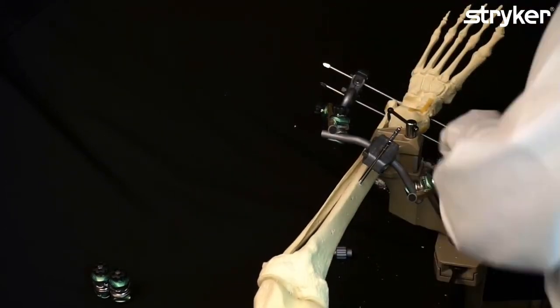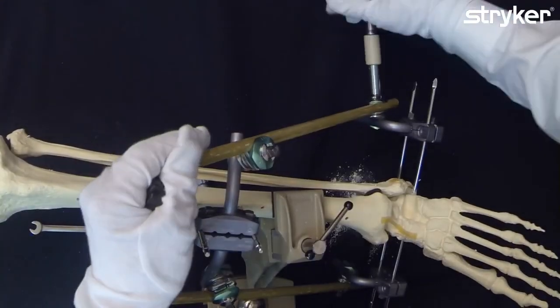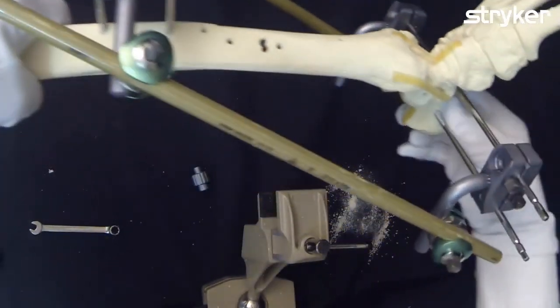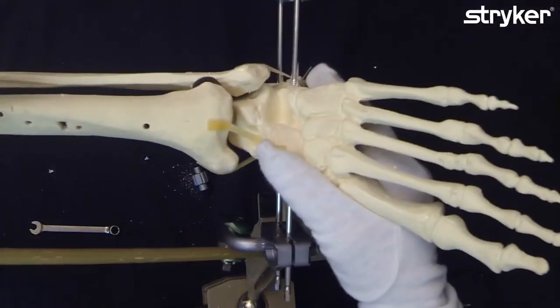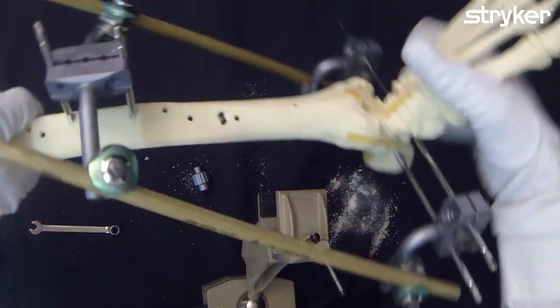Now the final tightening. We have a frame with good visibility on the middle lateral side, good access to the surgical area. The other side. Okay, that's it for this frame.